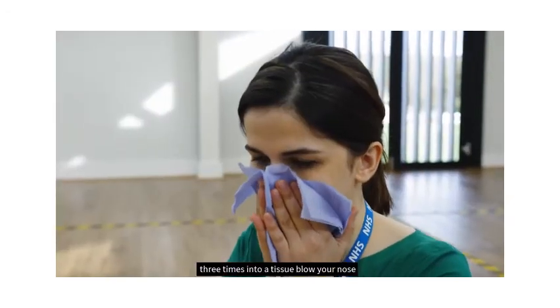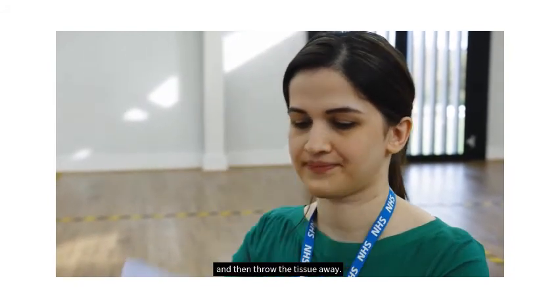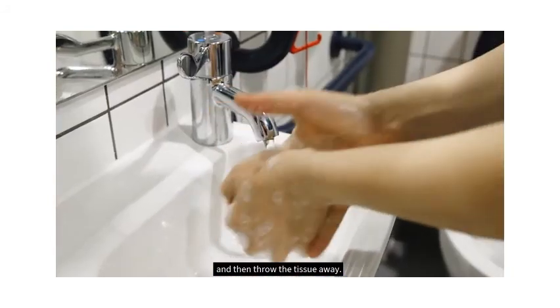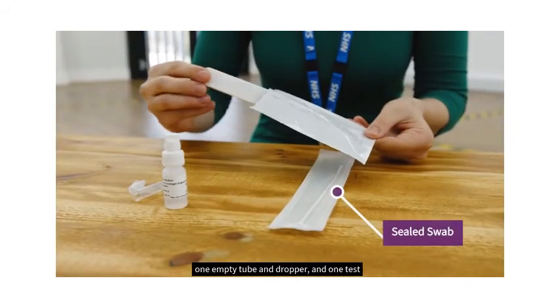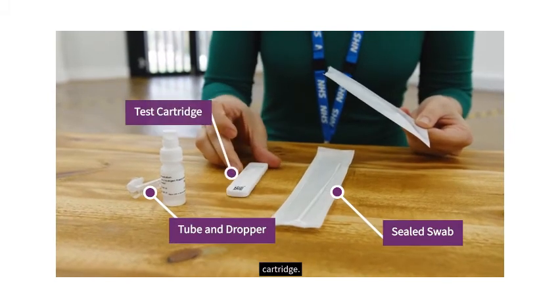Gently cough three times into a tissue, blow your nose, and then throw the tissue away. Wash your hands. Select one sealed swab, one empty tube and dropper, and one test cartridge.